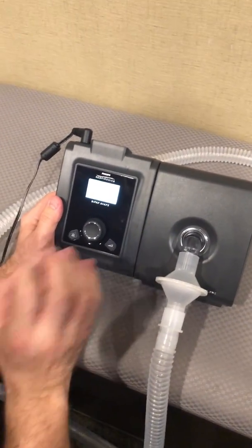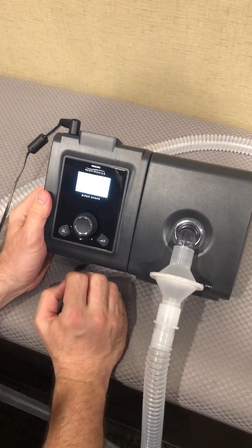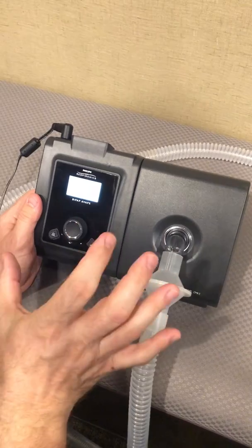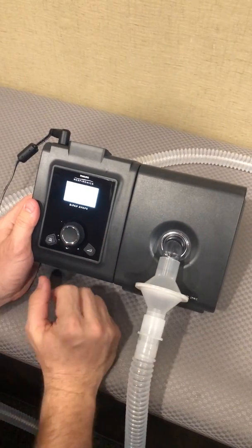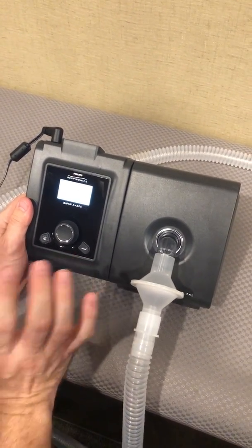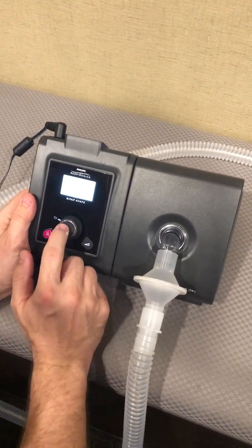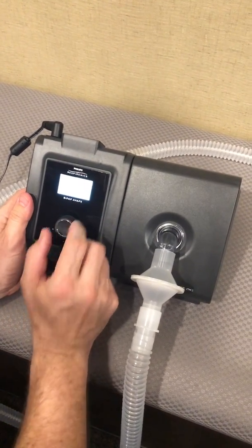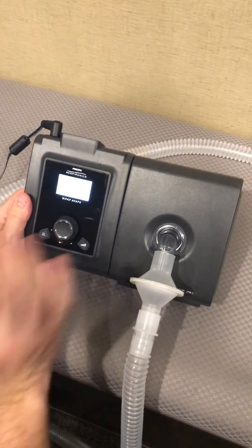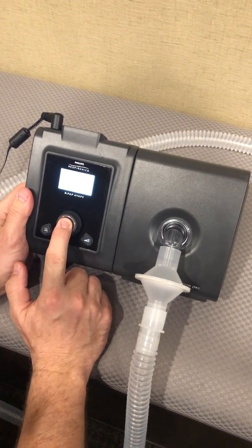We're going to take a few minutes to discuss this BiPAP unit. It's a BiPAP with AVAPS unit for home use primarily, typically for patients using it non-invasively in the home. However, we are going to demonstrate today how to set it up in a clinical situation for an invasive patient, and it is possible to do that.